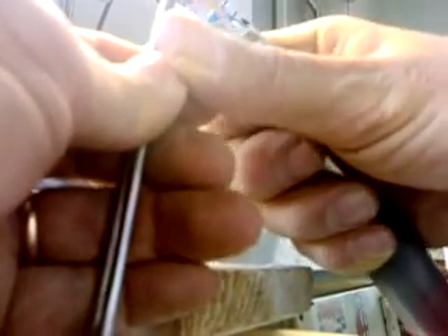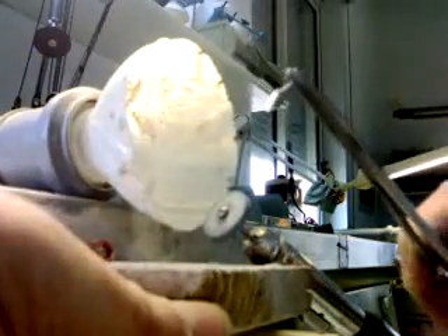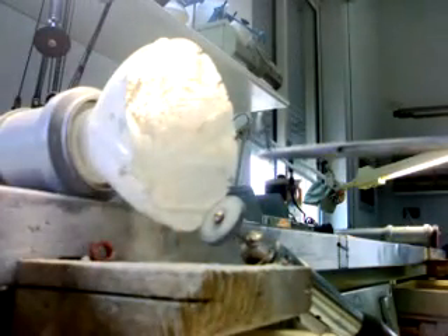The next step will be with a non-contaminating grinding stone. There are no bubbles — I have looked inside this core and there are nothing there, so I have to do nothing actually there. We have taken off the excess of the spruing channel, what was left from the spruing channel. Now we can proceed with refining these post cores.